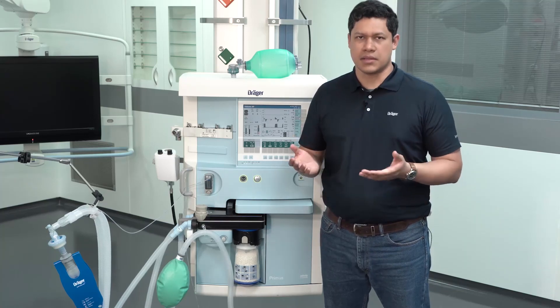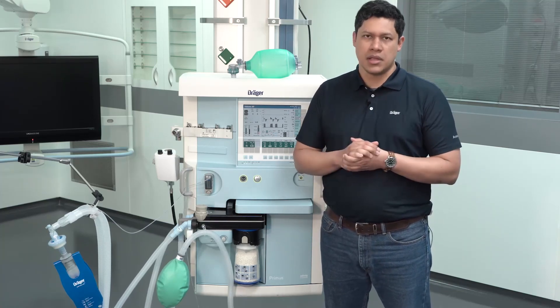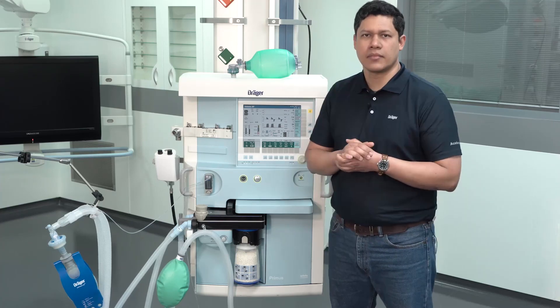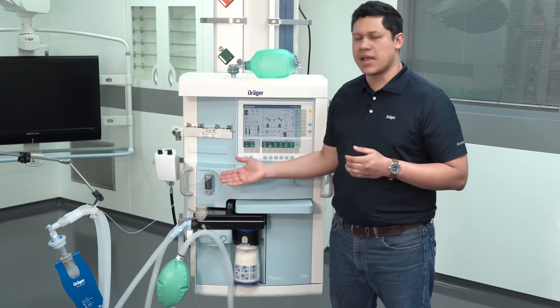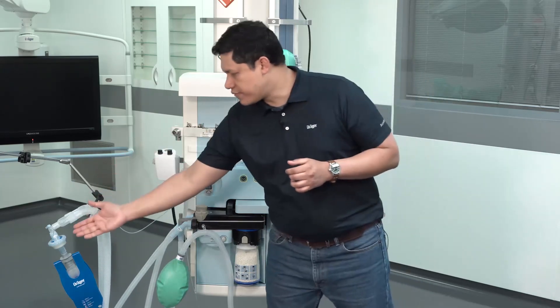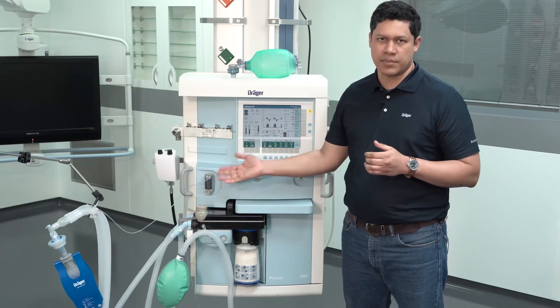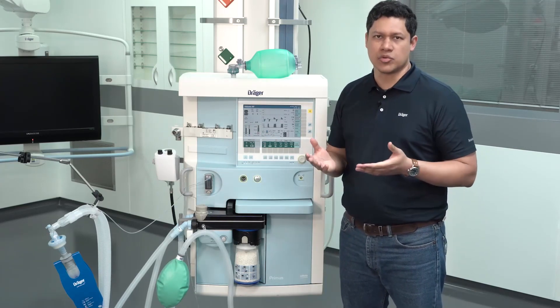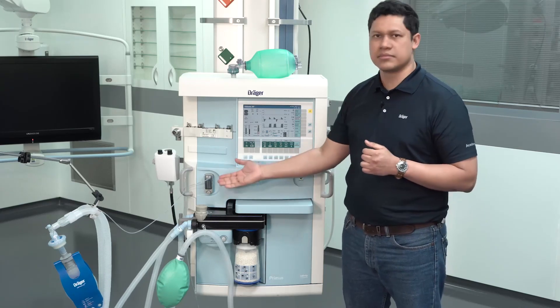The hospital guideline should always be followed regarding infection prevention. Keep in mind that the sample line should always be tightly connected to the patient filter and to the gas measurement water trap, because the measurement of FiO2 and CO2 is performed by this system.